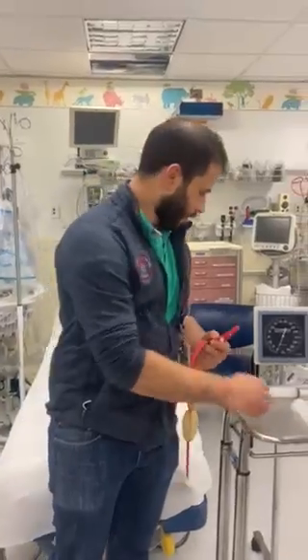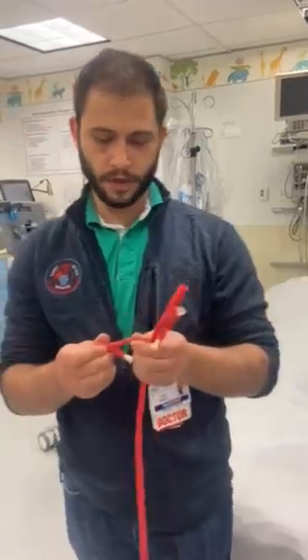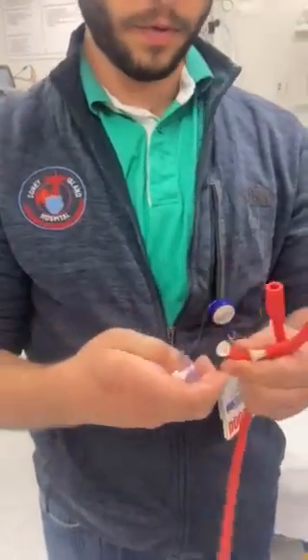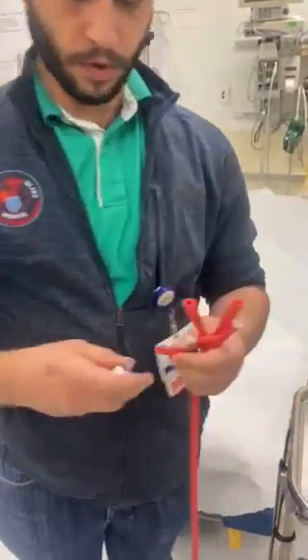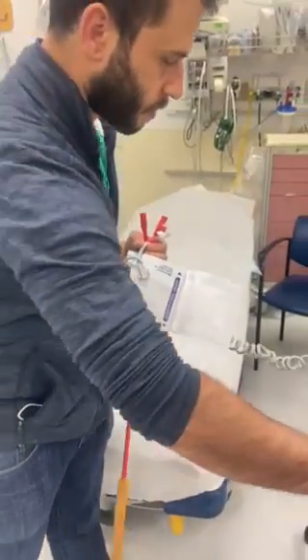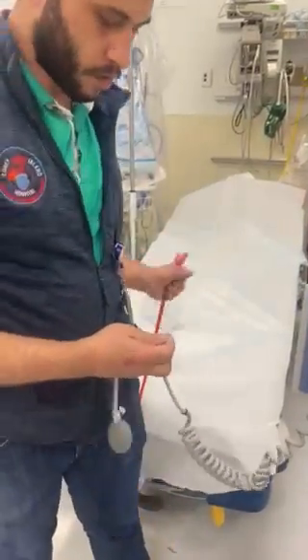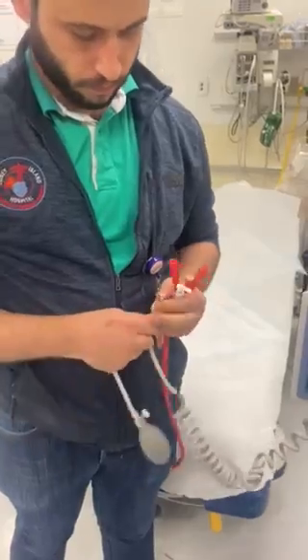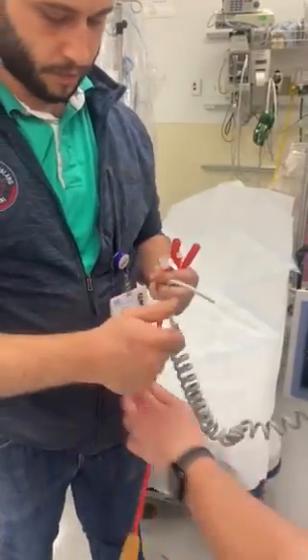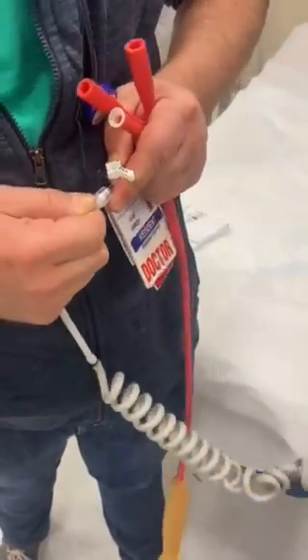After that, you're going to grab a three-way stopcock and grab the esophageal balloon tube. You're going to put the stopcock in there, then grab your manual blood pressure cuff. Remove the tubing so it goes straight to the cuff, and attach it there as tightly as possible.